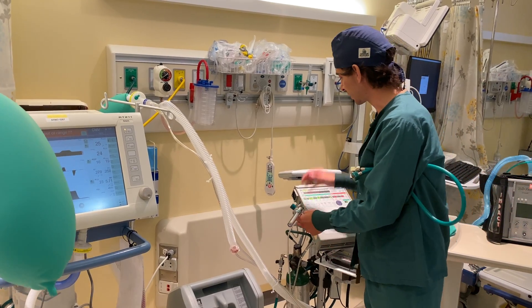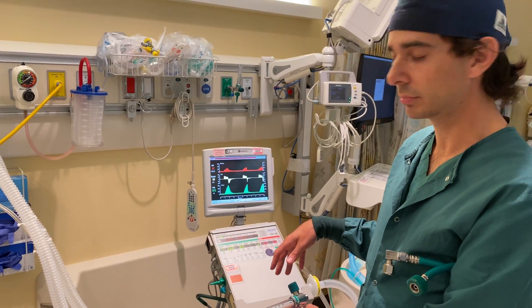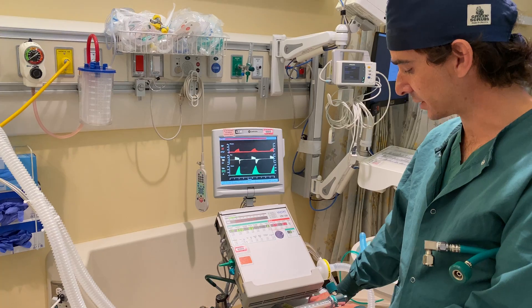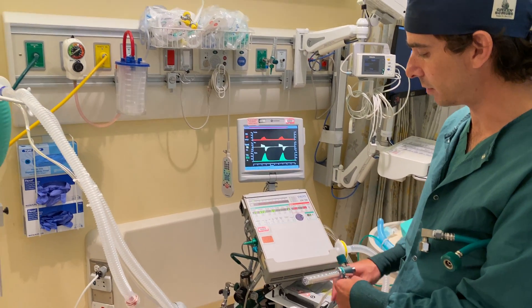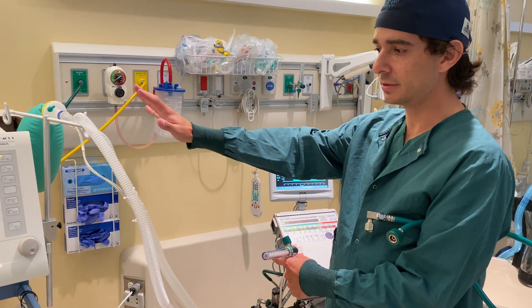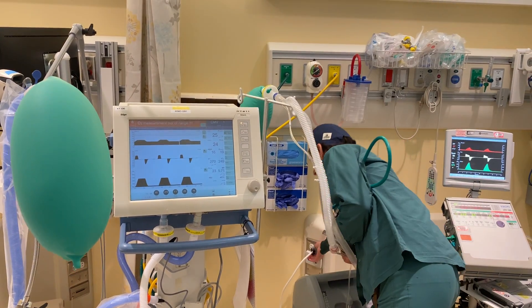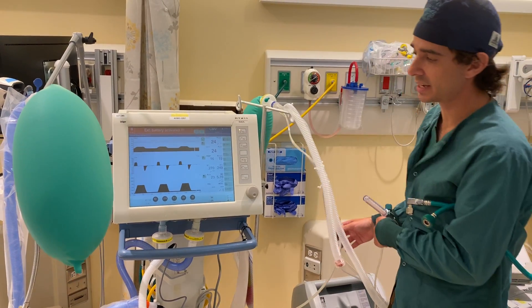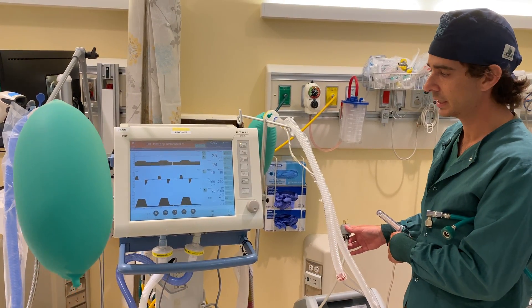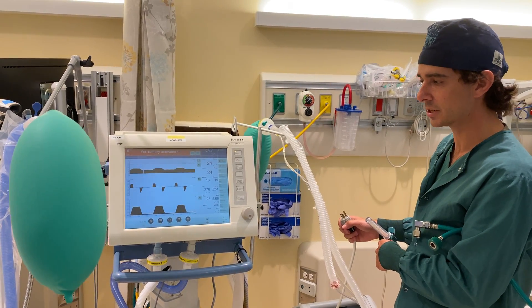This ventilator is currently running, as you can see. It's not plugged into the wall — it's running off of an internal battery pack, and it also has two external spare batteries. So it has a relatively good long backup battery life. The ICU ventilator is plugged into the wall right now. I can unplug it — it'll give me an alarm, but it does have a battery that will last for some time to continue ventilating the patient. Sometimes these batteries don't last quite as long as the transport ventilators, but there's variation in that.